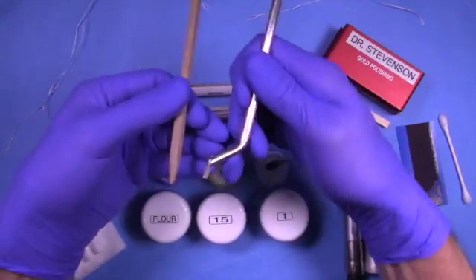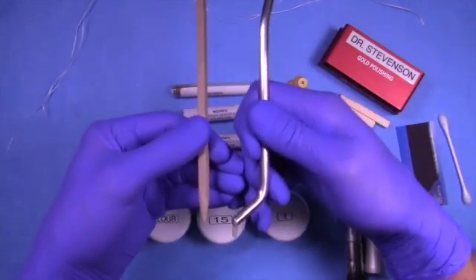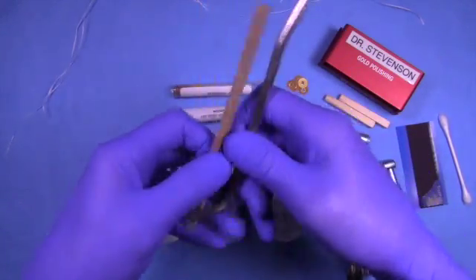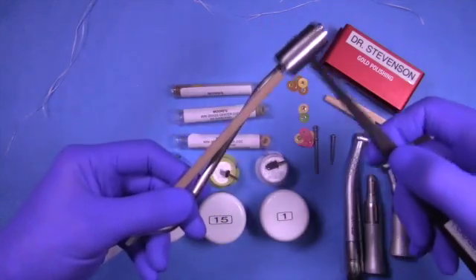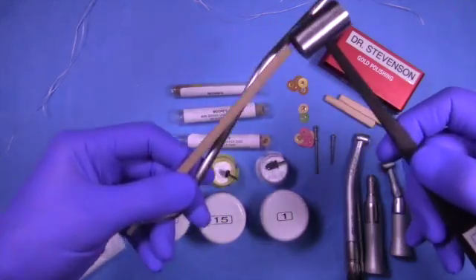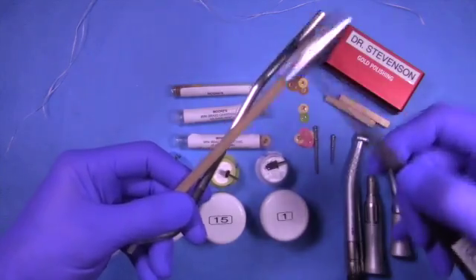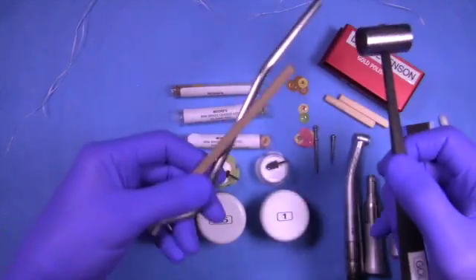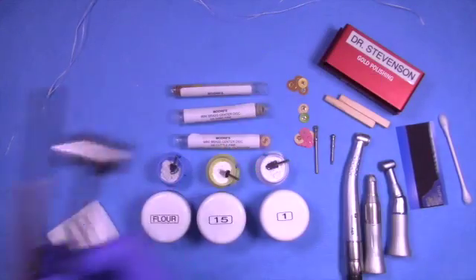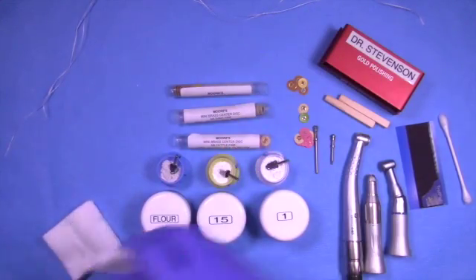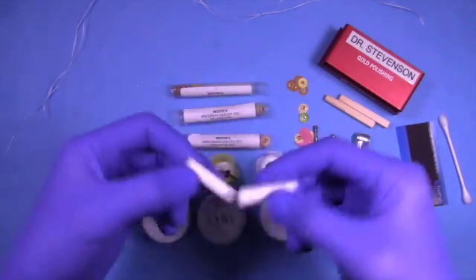We can also use an orange wood stick or even a chopstick and just tap on this. I like the first one because it's off angle. Unfortunately you cannot find these anywhere anymore—they're gone. But oftentimes I'll just use two chopsticks or my off-angle seater with another chopstick when I have two areas that need to be seated.